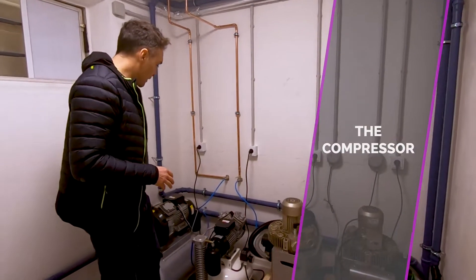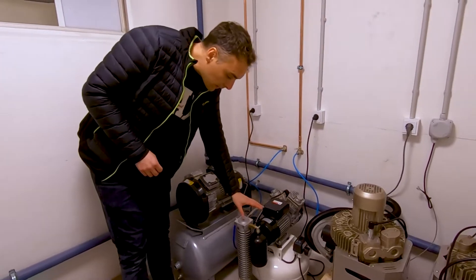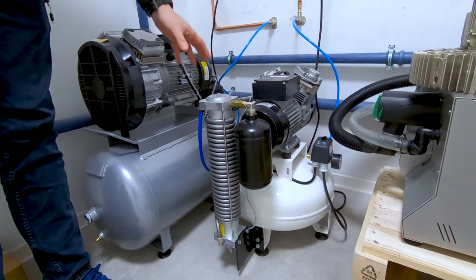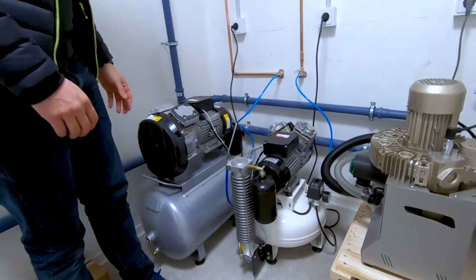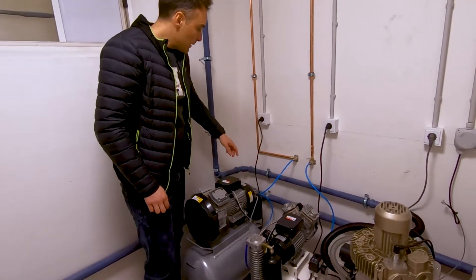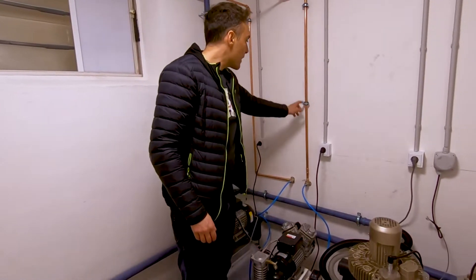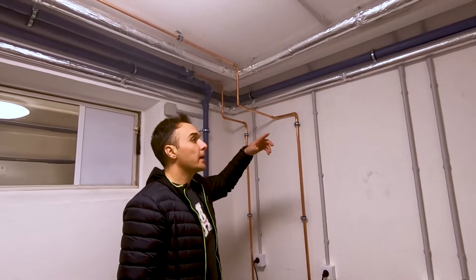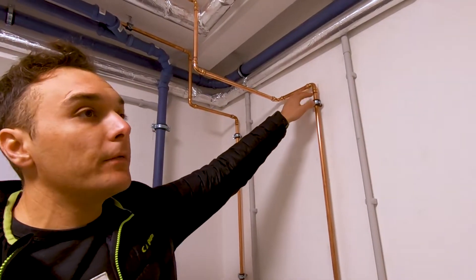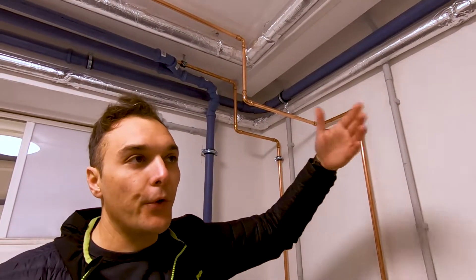Regarding the compressor, we have done two different lines as I just explained. The compressor has a dryer system so the air that arrives in the clinic is very dry and it doesn't create any problem. We just put the plug a bit up, not on the ground, so the cable remains up from the floor, and we use copper pipes for the internal system. One important thing: in the compressor system we don't need to create 45-degree angles — we can use 90-degree angles, that is not a problem. This is different for the suction pipe, which we are going to see now.